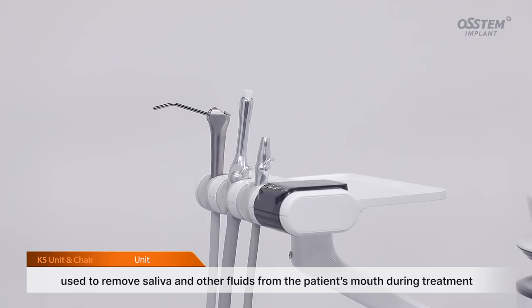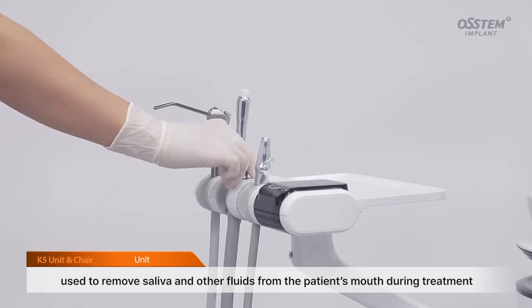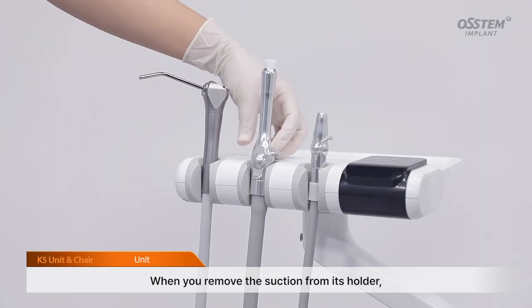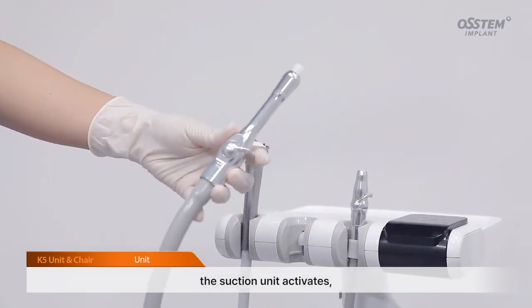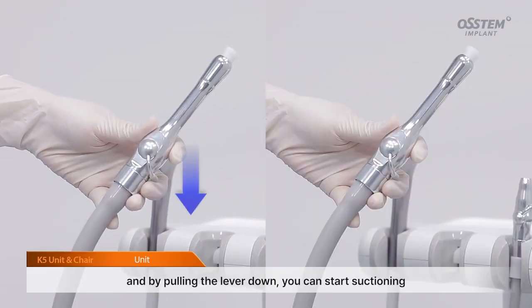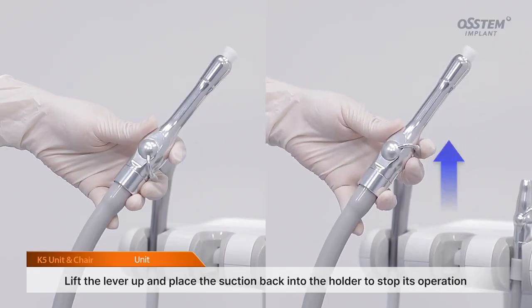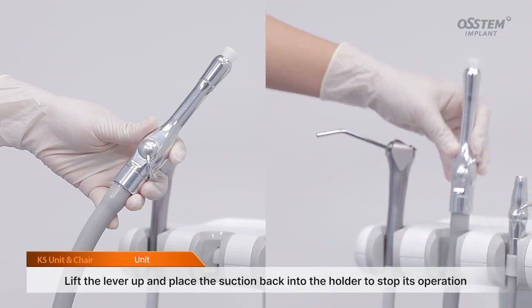Suction is a device used to remove saliva and other fluids from the patient's mouth during treatment. When you remove the suction from its holder, the suction unit activates, and by pulling the lever down, you can start suctioning. Lift the lever up and place the suction back into the holder to stop its operation.